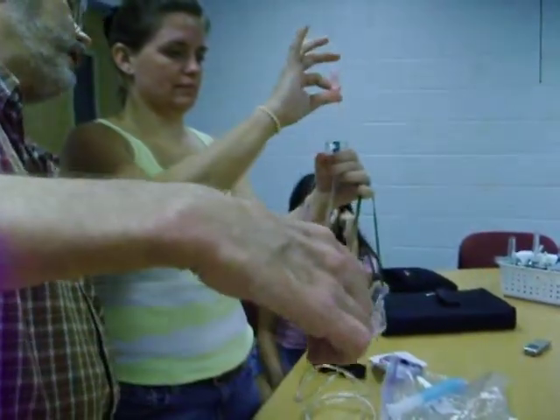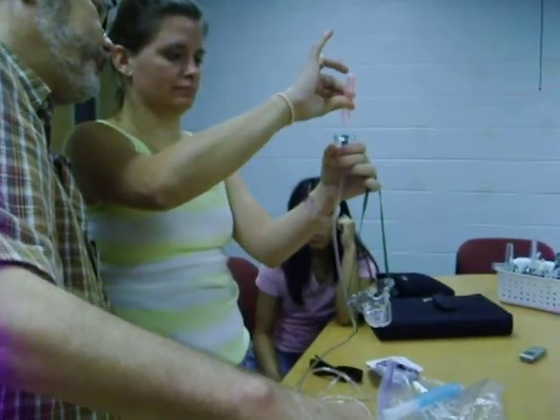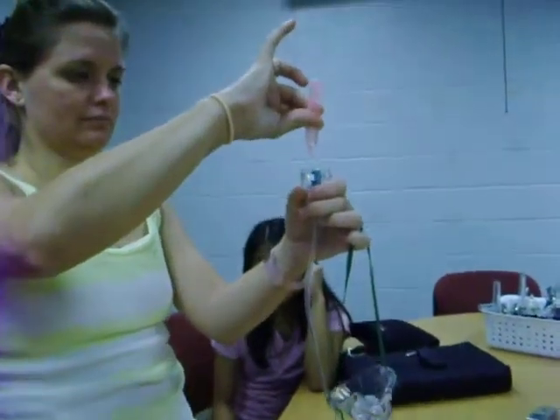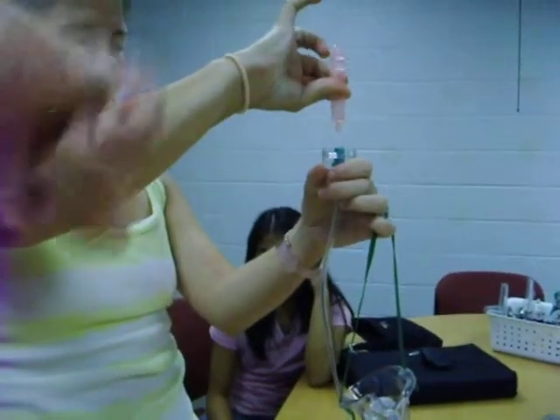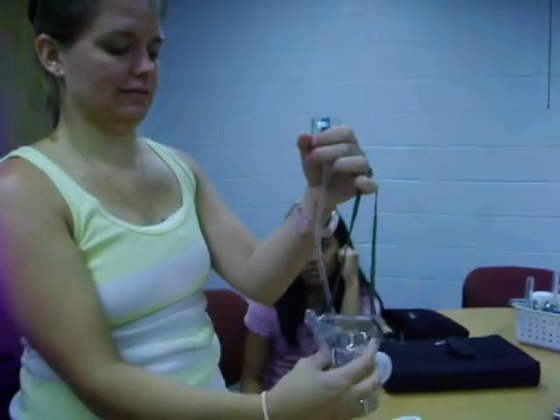Hold the vial up a little higher, like an inch, and fill it up. Now, at this point I zoom the camera to see if you're maintaining sterile technique. A lot of people put it in there and shake it all around — it makes no sense to me, but you will see somebody do that.